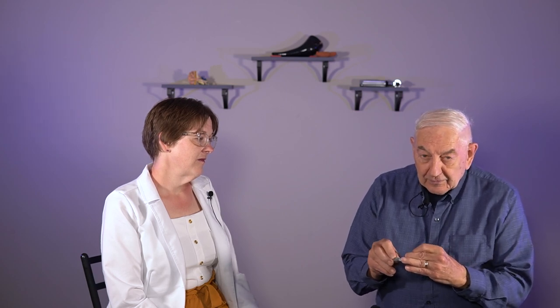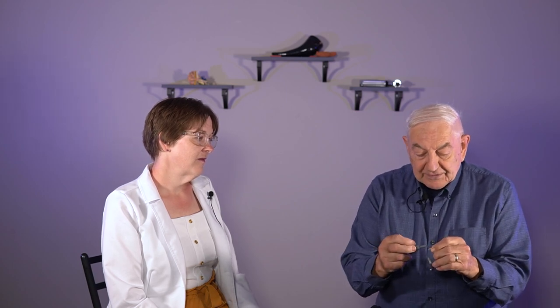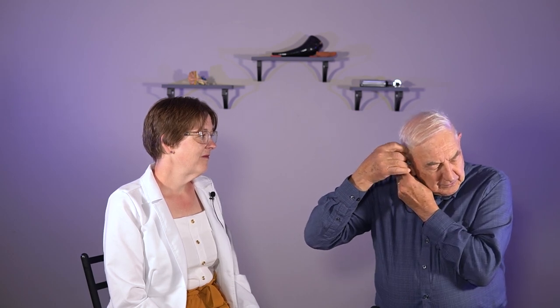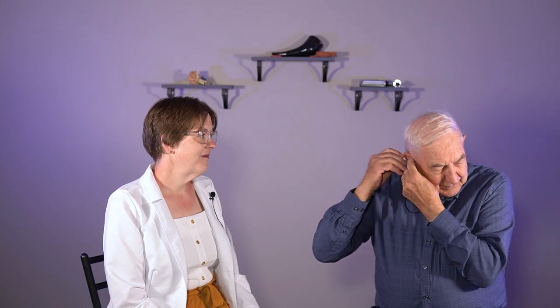On this insert tool, there is a slot right there, and you put that slot over that, and it slides your hearing aid into the tool. Then you rotate it like this, so it can be put over your ear. Then you just put it in your ear like that, and then put the main body over your ear. Then with your other finger, put it on the wire that goes from your main body to your receiver, and that's it.